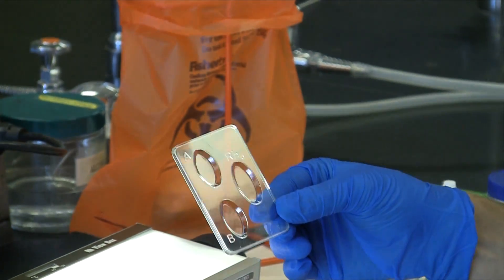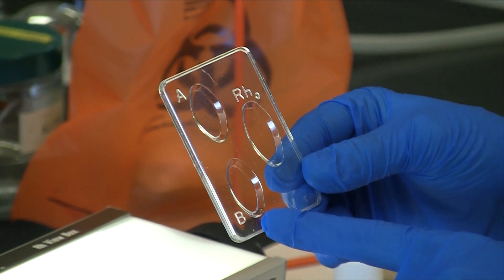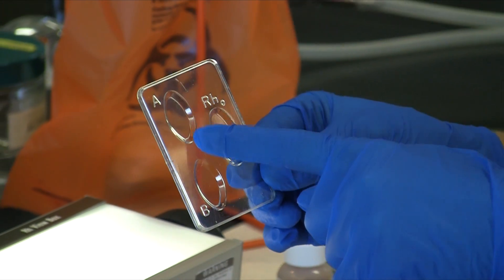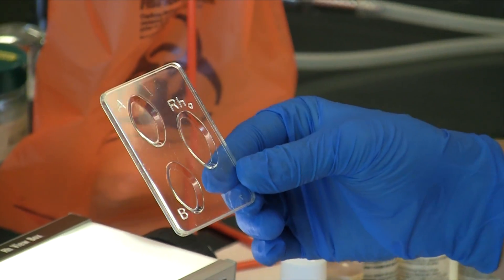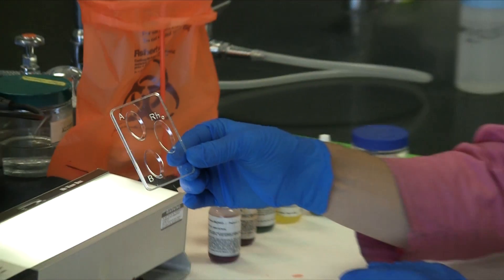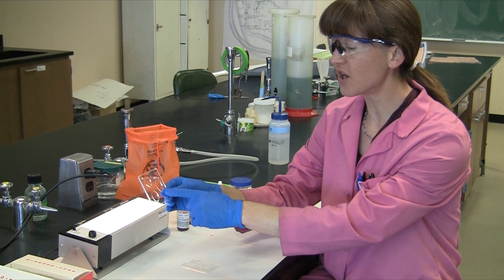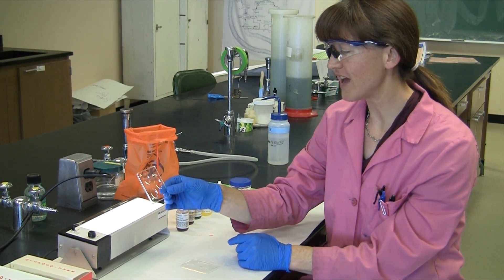To the well labeled A, we're going to put antibodies to type A blood. In the well labeled B, we'll put antibodies to type B blood. So what that means is that if it clumps in the B well, then that person has type B antigens — we could say they're type B. If it clumped in the A well, we could say type A. A person that clumped in both would be type AB. The RH factor is another surface glycoprotein that people can have on their red blood cells — in fact, 85% of us do, so it's more common to have than not. In that well, we're going to put antibodies to the RH factor and see whether the blood will clump, or agglutinate — that's the technical term — in this well.